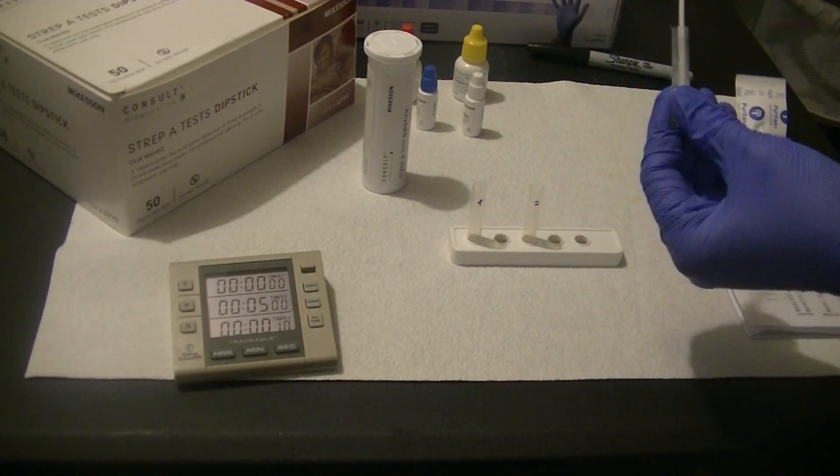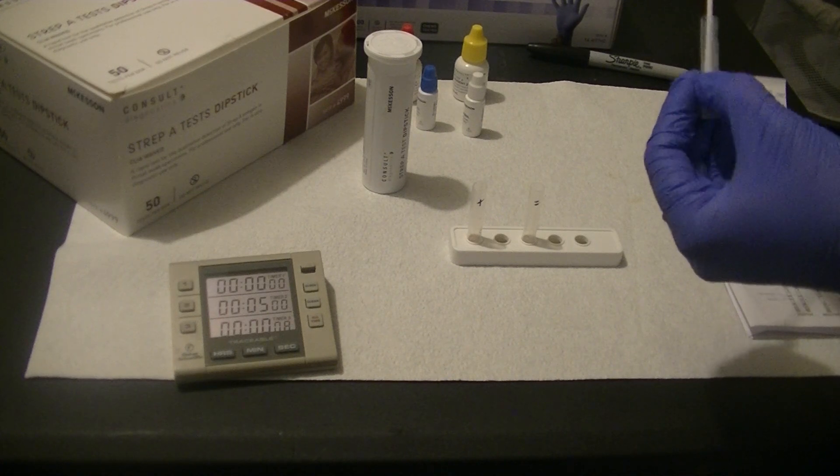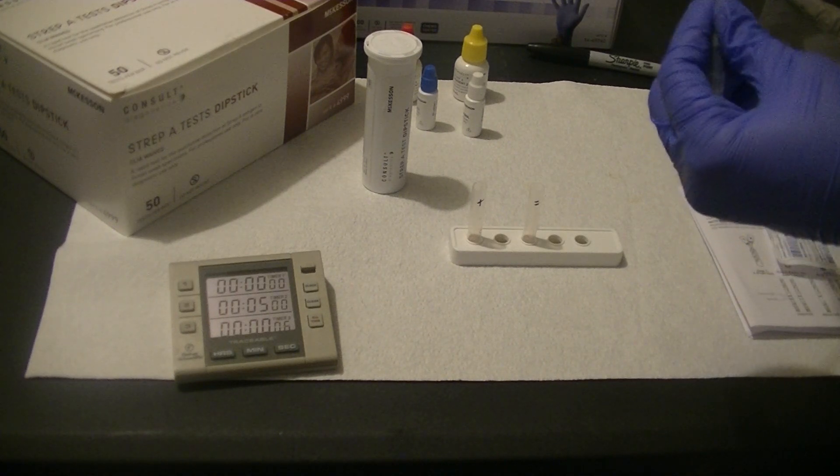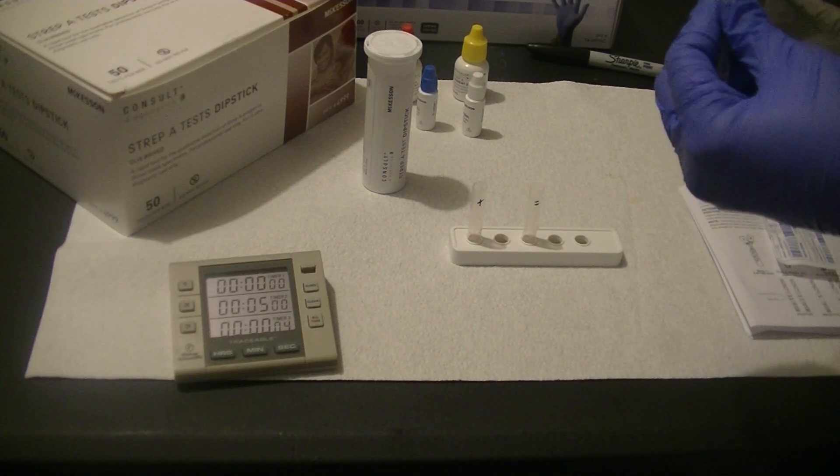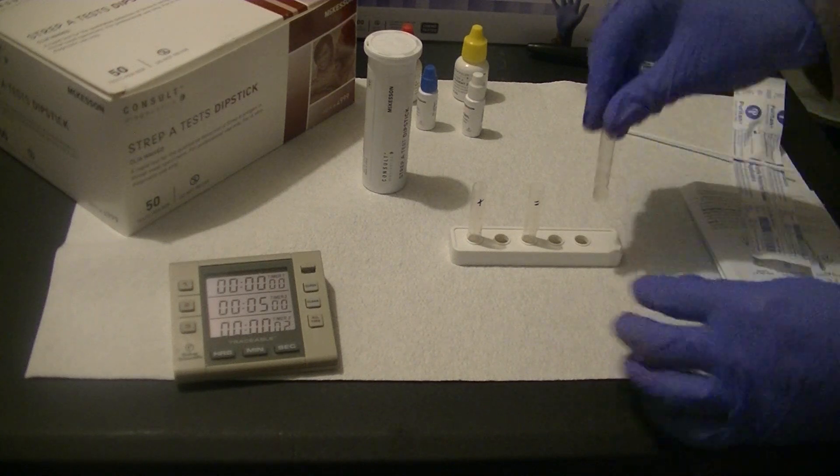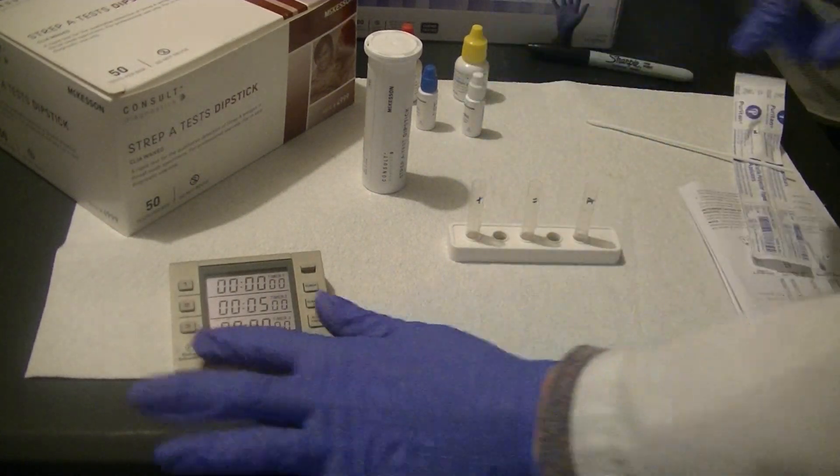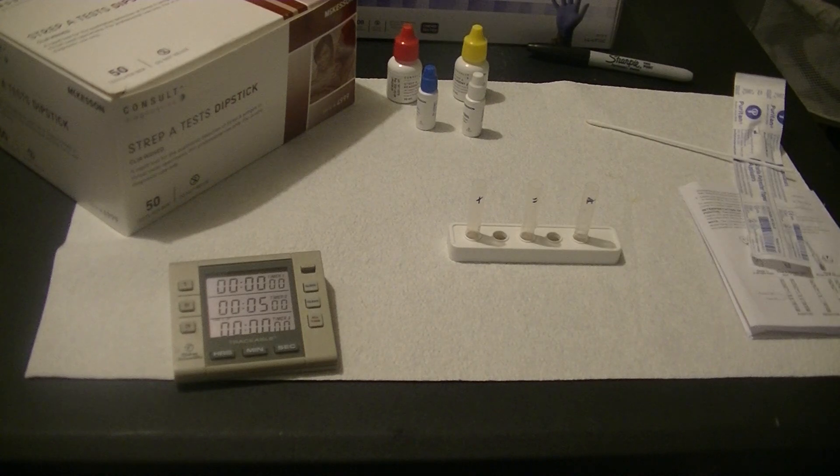I've got about 10 seconds left. What I'm going to do is remove my swab and make sure and squish all that moisture out of the tip of that swab. And now comes the next step.